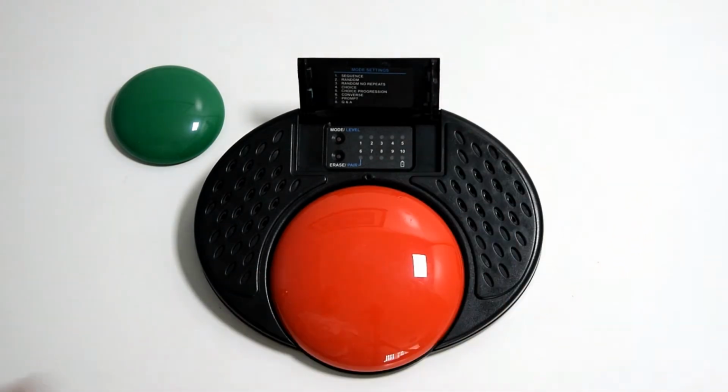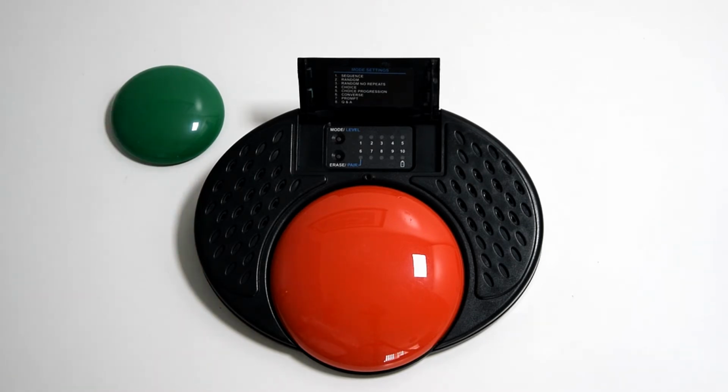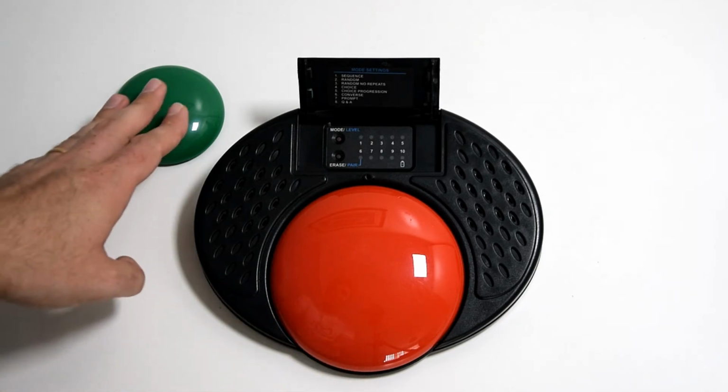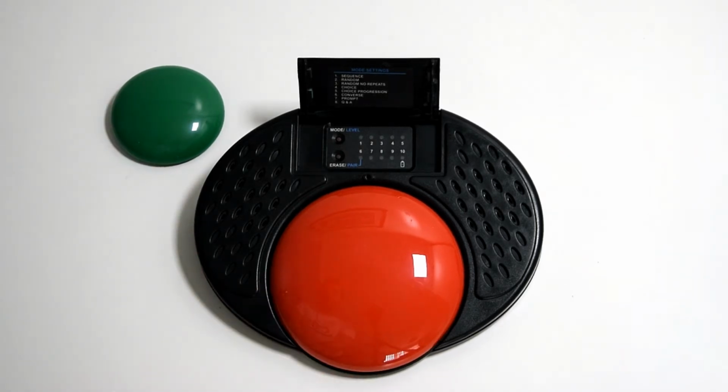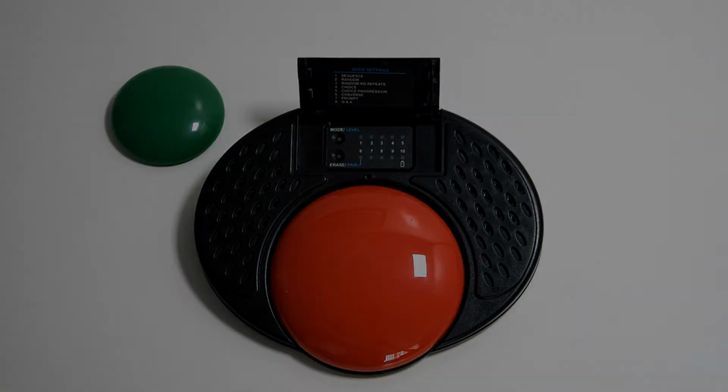So we take it out of record mode. The smoothie's still paired up. So now what we should have is a choice option. So you could ask a user who has issues with struggling to communicate if they're okay. Yes. Or if they're not feeling too good. No. And that's as simple as that. Choice only gives them the two options, but obviously you can use either one at any point. No. Yes. No. No. And so on.